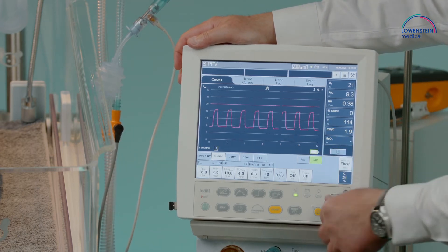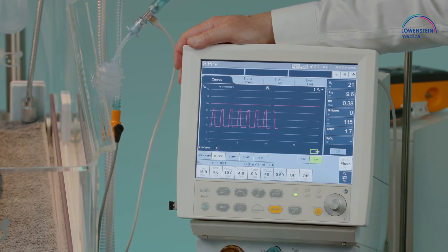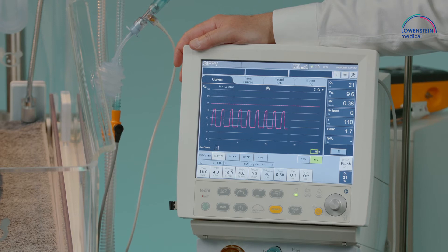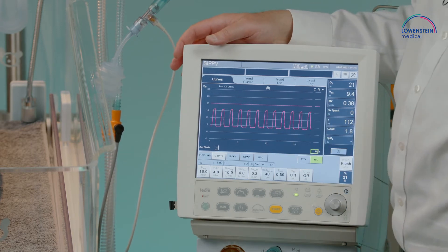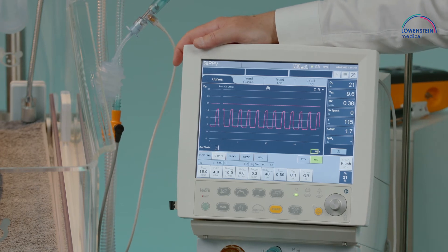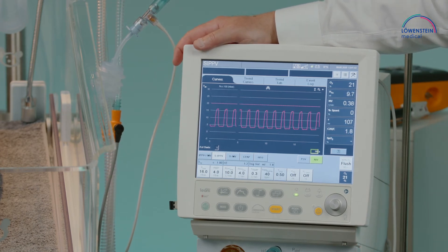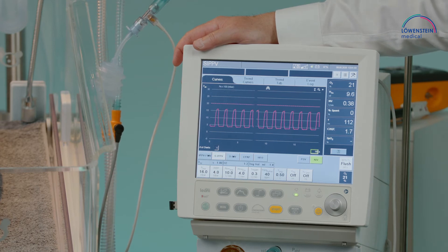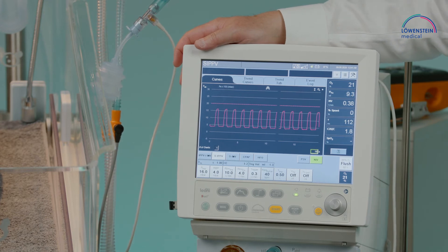The time axis can also be adjusted. For slow ventilation you can use a longer time span across the screen, and for fast ventilation such as HFO you can use a 5-second window across the whole screen, for example.